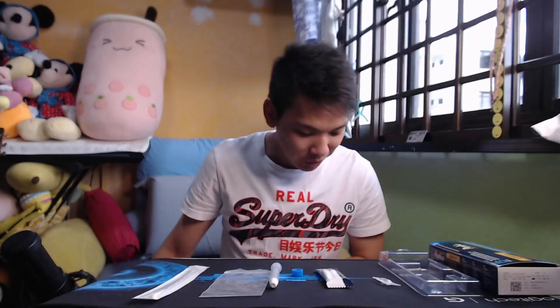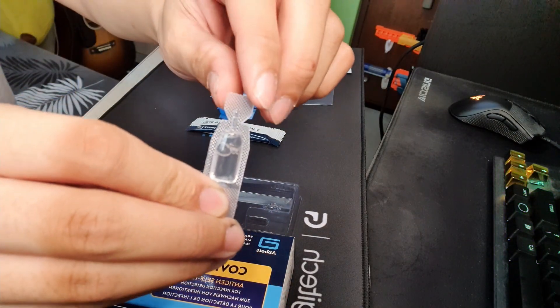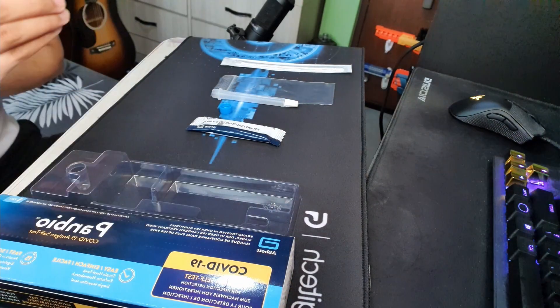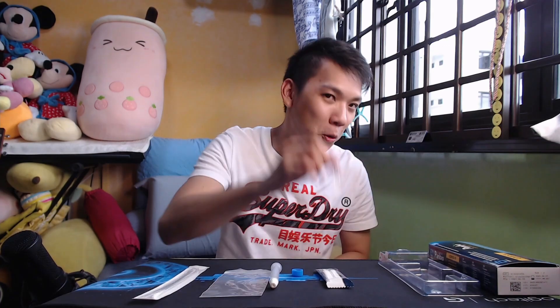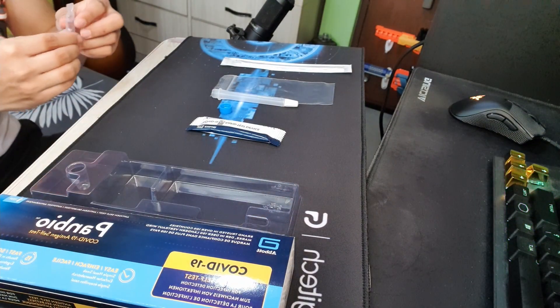I'm not going to be actually doing it because I don't want to waste a perfectly good kit, but let's walk through it. Step one: open the buffer bottle — twist it and open it, just like how you would open an eye drop. Keep it upright after you open it.